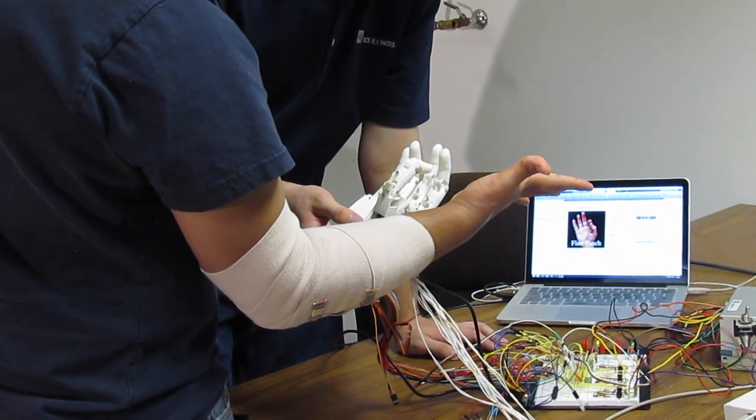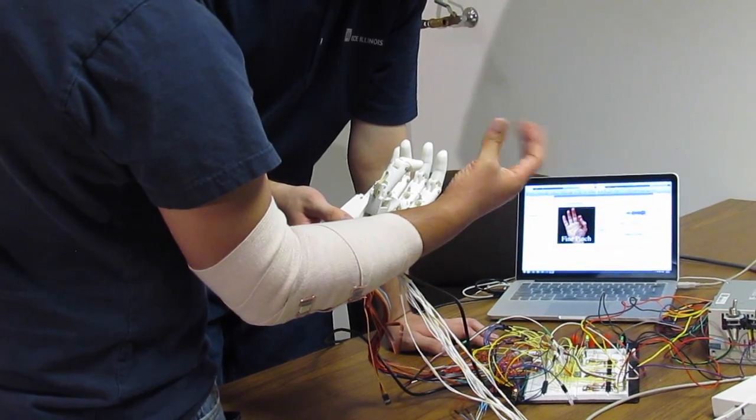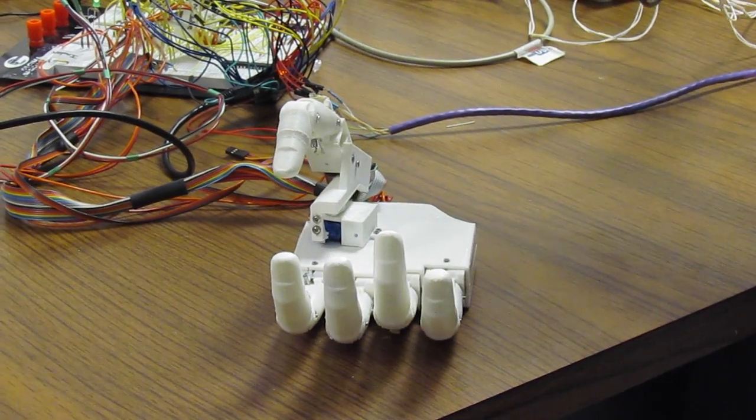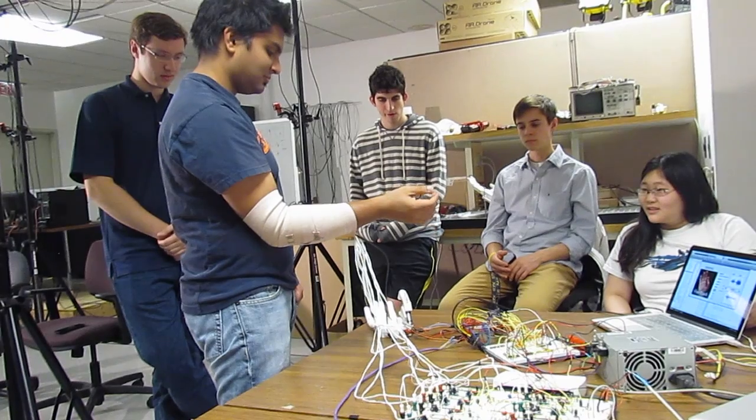The idea of using 3D printed prosthetics came about last year when I was talking to another group member, Mary Nguyen. Around this time there was an explosion in 3D printed prosthetics and you can see a news article every day about the latest 3D printed prosthetic hand.